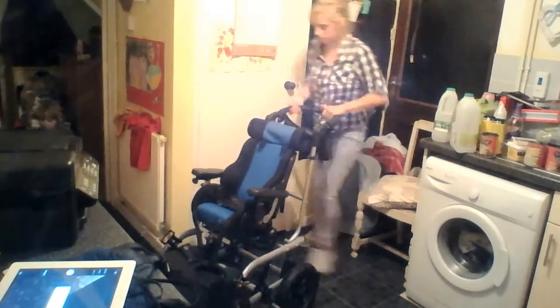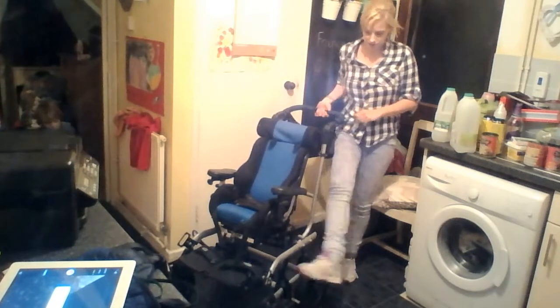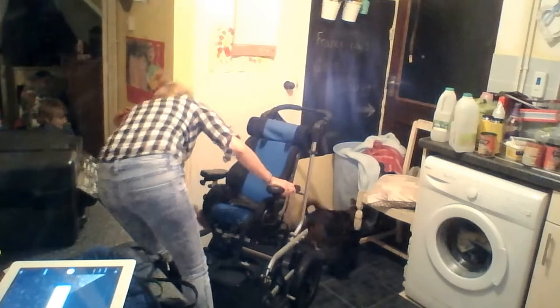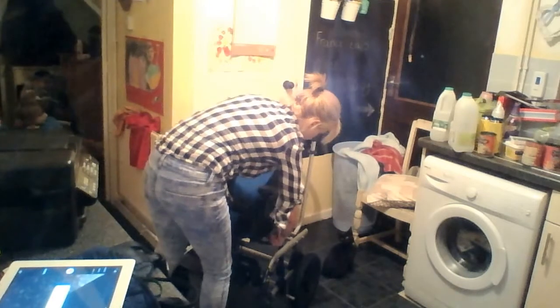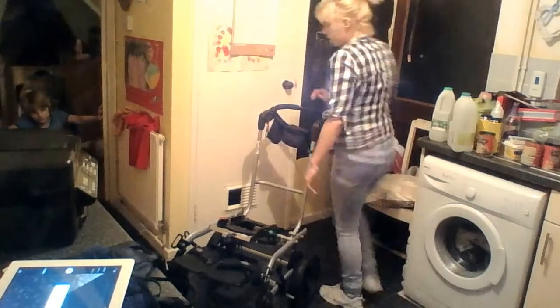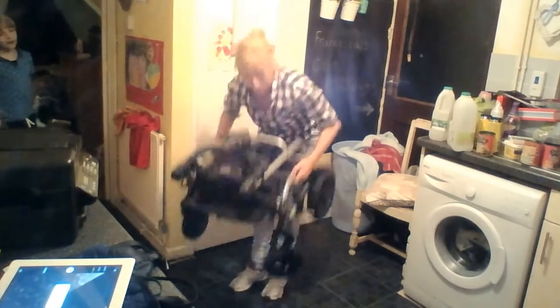Then you've got your brakes — they look pretty good, pretty sturdy brakes. And you've got your car hooks here and here. To fold it down, you have a little catch here and a red slider thing here. You pull this out and it clicks twice, then you take that out and push it back and it folds down. That's as small as it goes. Then you fold it down, press that thing in, handle it like that, then lift it up.